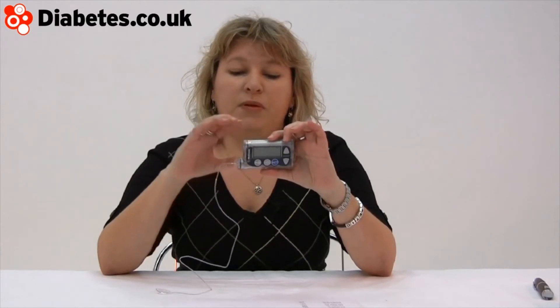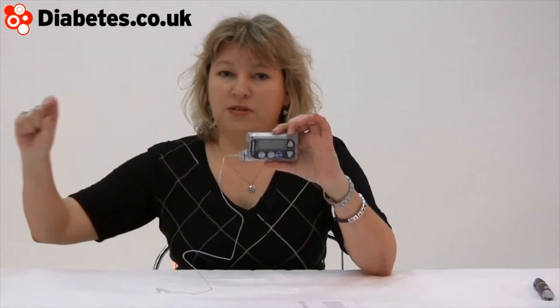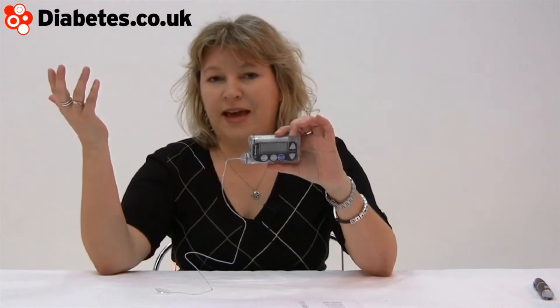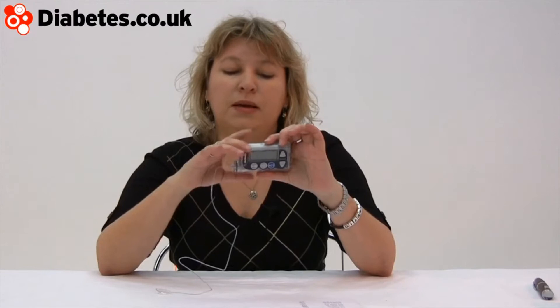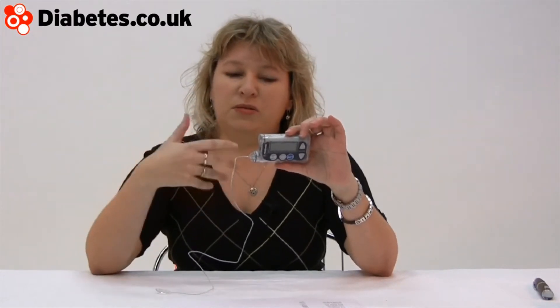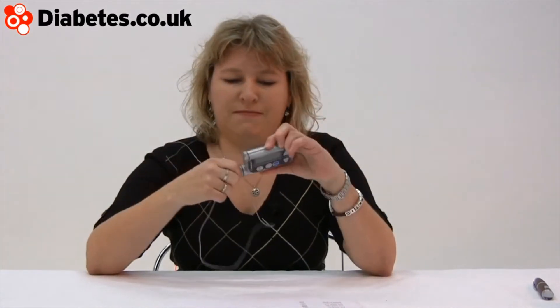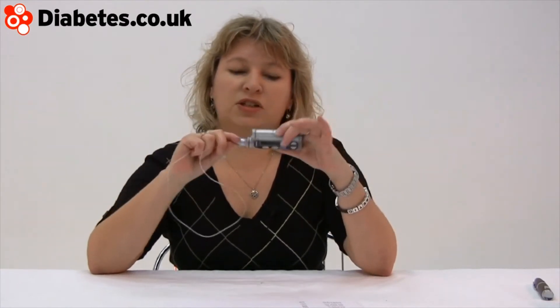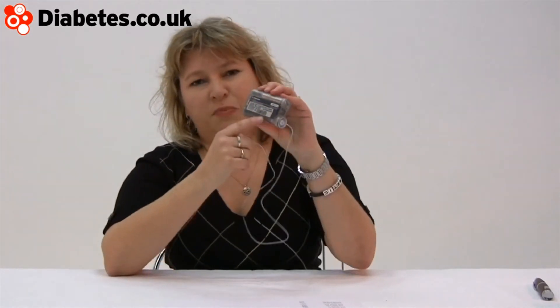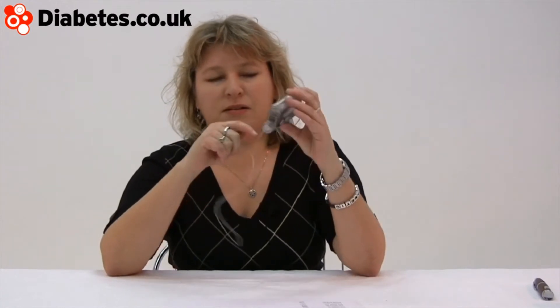With your insulin pump, the background is always programmed to go in, so that's going through every hour through the day and night. You wear the pump all the time. Then when you have food, you have to mimic a shot, but it's called a bolus, and you basically program it in. You've got an insulin reservoir, which is terribly similar to the cartridge. The insulin goes through here — it's a plunger, but it's mechanical instead of manual.